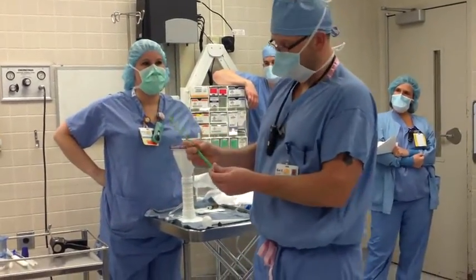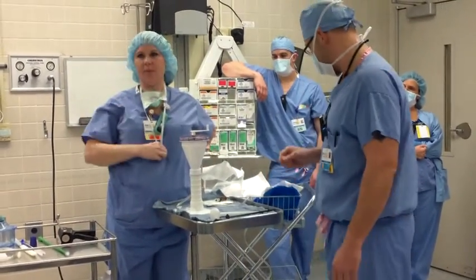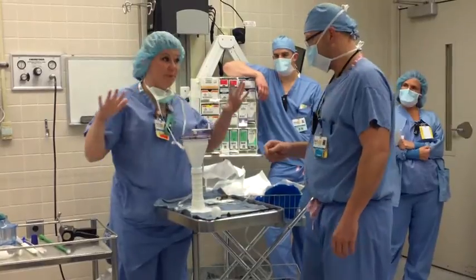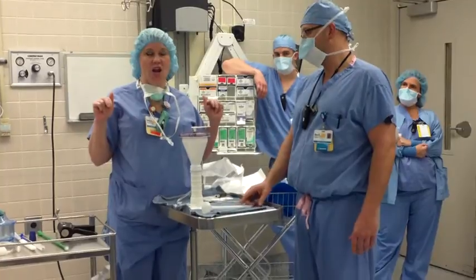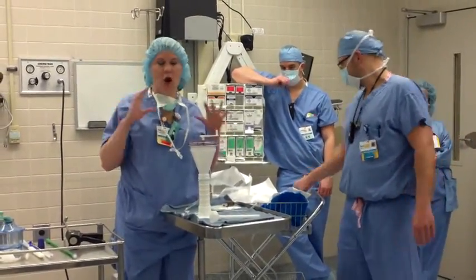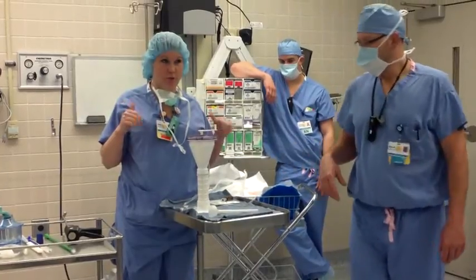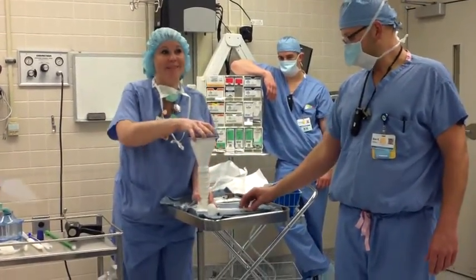There's the small restrictor I was talking about. You can definitely tell them which one you want. For hips, always a minimum of two batches — could be more, but usually it's two. It could be three, but never one. Always two or more. You'll break the femur if you use one.